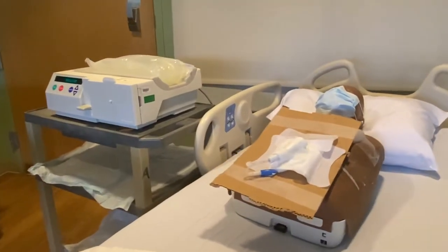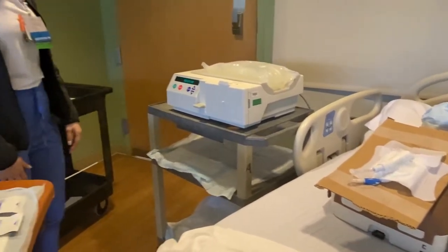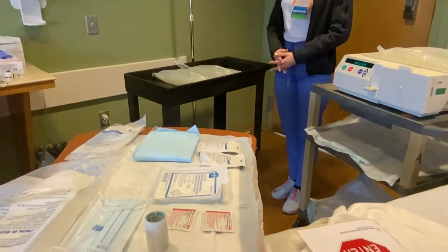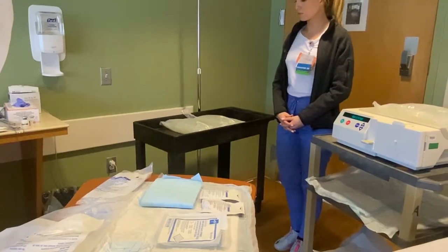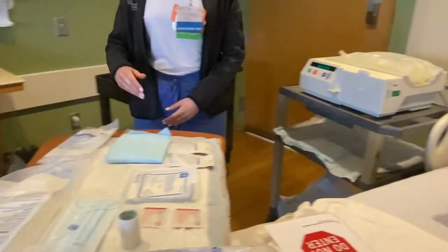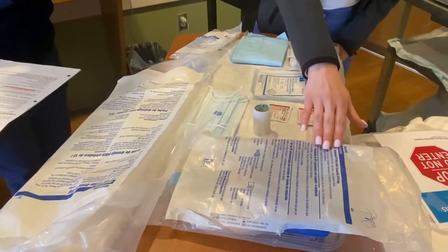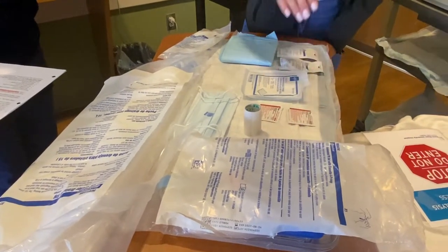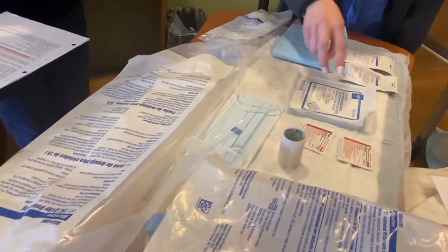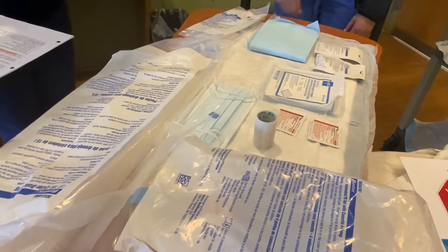Automated peritoneal dialysis, or PD, using the cycler. Gather supplies: solution bags as per order — total volume equals the amount ordered plus an additional 500 cc to prime. Disposable set, drain bag, Y-connection set, four-prong disposable set with cassette, four to five blue chucks, a four-by-four gauze, two betadine, plastic tape, face mask for the patient and yourself, and mini caps.